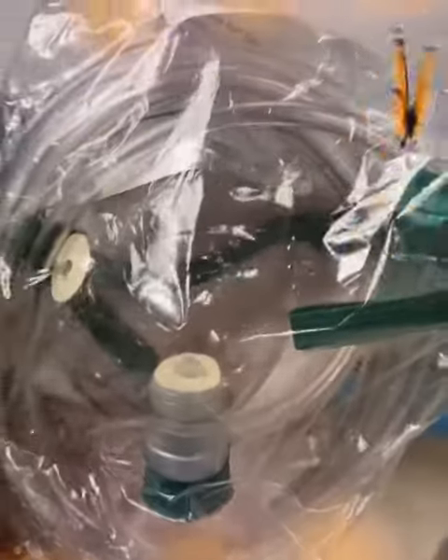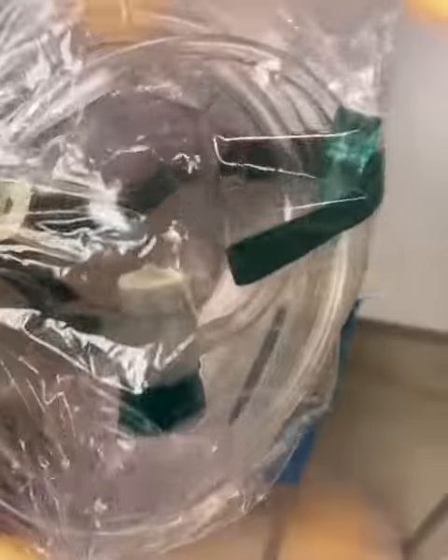Hello respiratory family. This is a pediatric non-rebreather mask. Note that the mask is a little smaller than we normally would see them. Non-rebreather because we have that one flap still in place. We run this between 8 and 15 liters per minute.